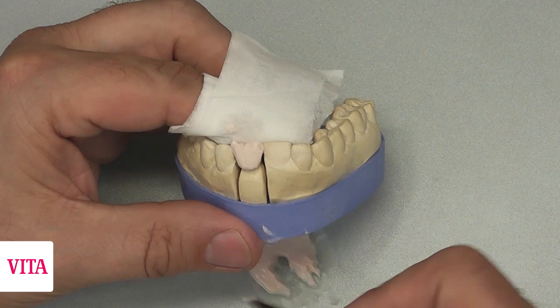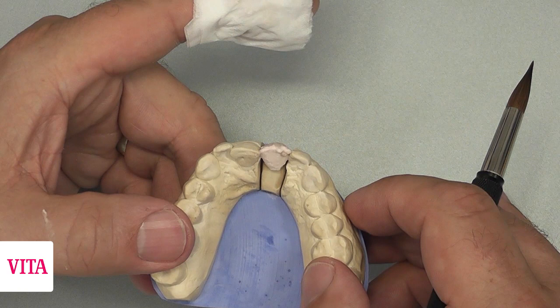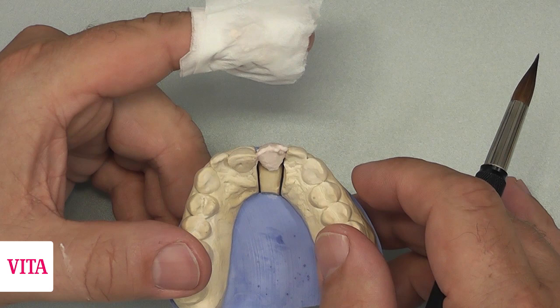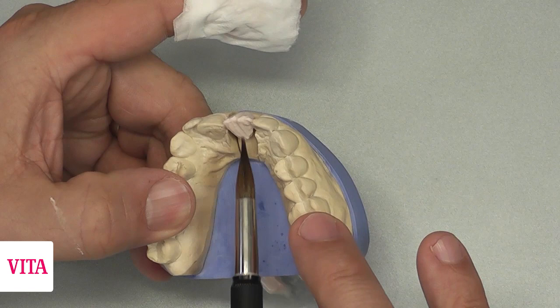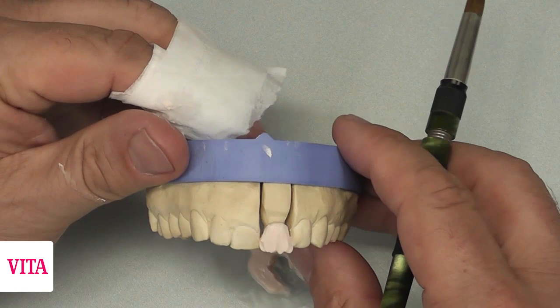We turn around the model and look at the palatal side. It is really important to view from the incisal edge to see how far we extend with the crown. The palatal modulation is easy because we apply only a thin layer of ceramic with the dentin. We build up some ridges, but be careful — patients normally don't like extreme modulation on the palatal side. With a short view back to the labial area, we now create the incisal edge with dentin again.